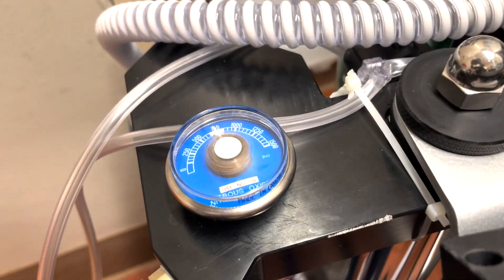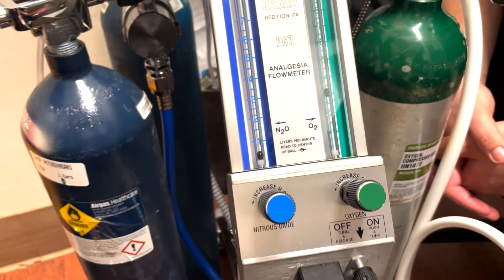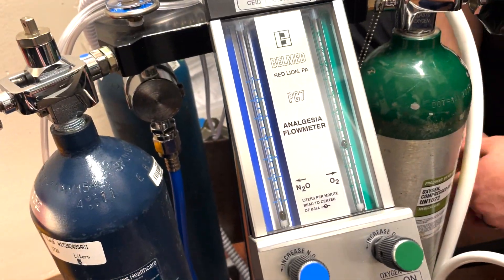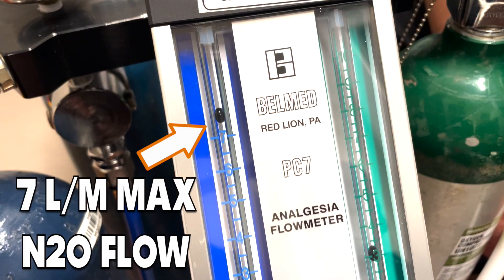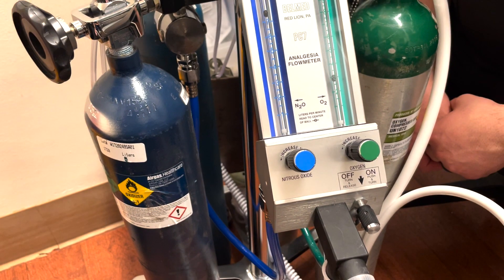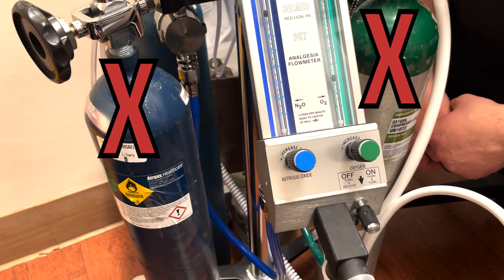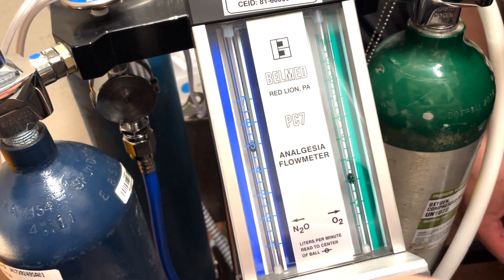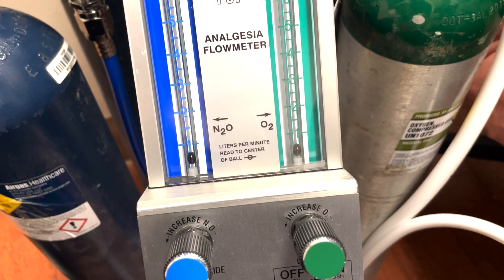Perform a brief pre-use check by turning the unit on, visualizing a baseline 3 liters per minute O2 flow, testing the O2 flush control, and turning the nitrous flow knob wide open to visualize a maximum of 7 liters per minute. This unit has a fail-safe mechanism in which nitrous stops flowing if O2 pressure is lost, to prevent inadvertent hypoxemia. Test this by turning nitrous to 7 liters and O2 to 3 liters, then turn off the O2 tank — you should see a complete flow shutoff of both O2 and nitrous. The unit is now ready for use.